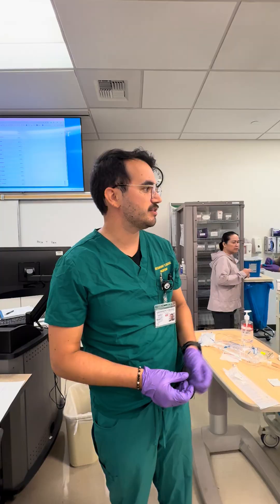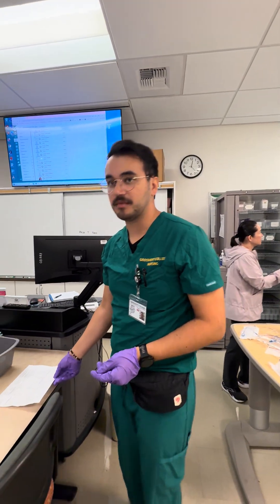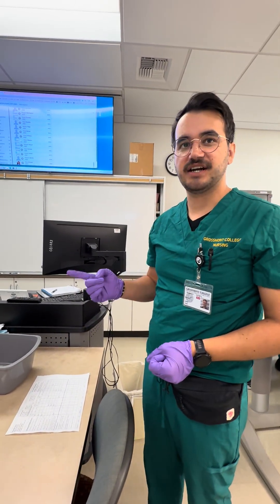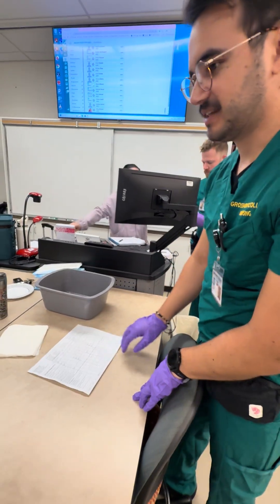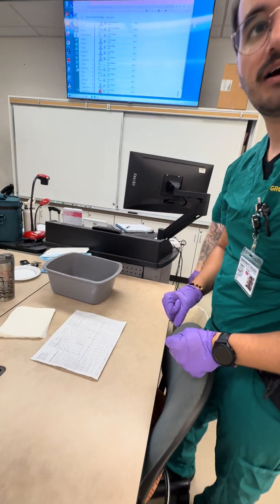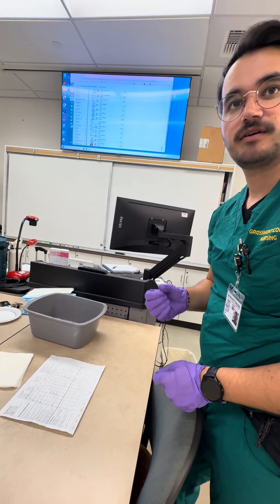Hello, my name is Avery Clark and I am a second semester nursing student about to demonstrate the use of an IV primary line for saline and an IV piggyback for cefazolin. We would start by reviewing the MAR. Our first MAR check is going to be at the Pyxis when we withdraw both our fluids and our medication. The patient is receiving normal saline at 100 milliliters per hour and cefazolin 2,000 milligrams in 100 milliliters over a period of one hour.